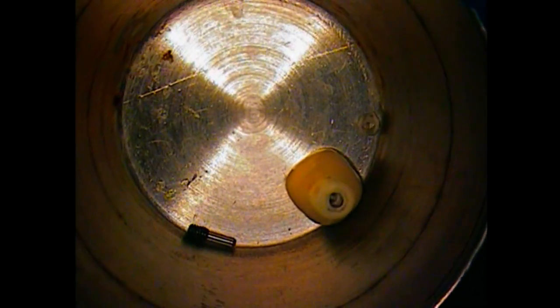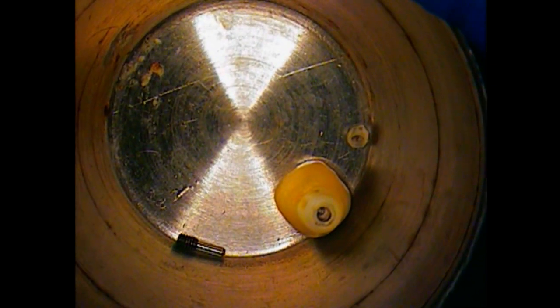So we're now going to redirect this case back to the referring dentist with the recommendation to go with strictly a complete custom-made or custom-designed titanium abutment made by the manufacturer. That would be Biomet Zimmer in West Palm Beach.